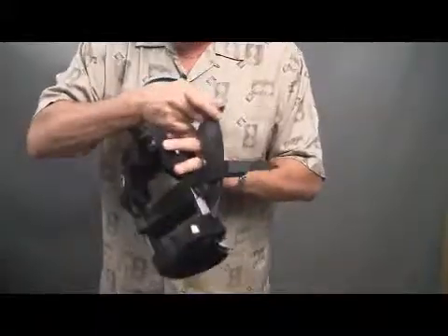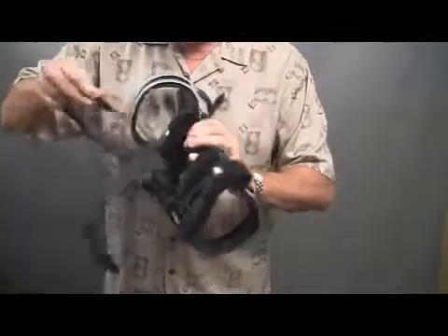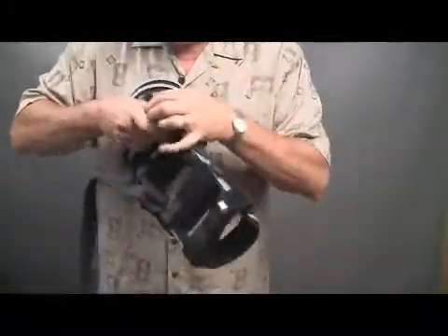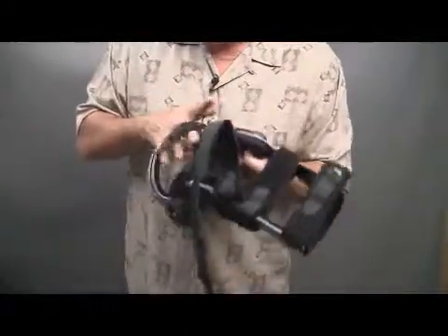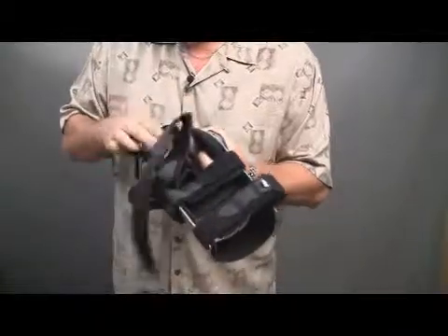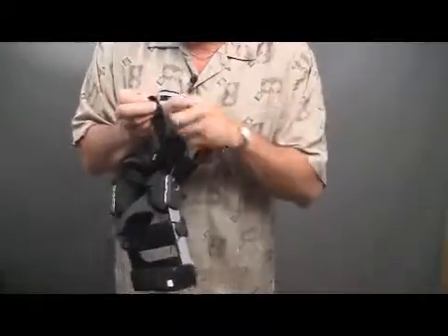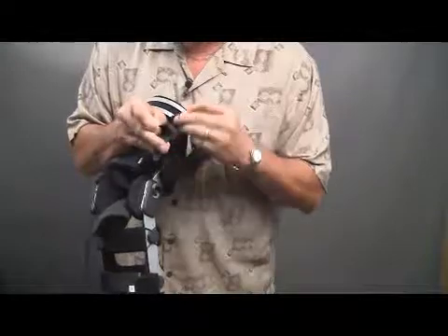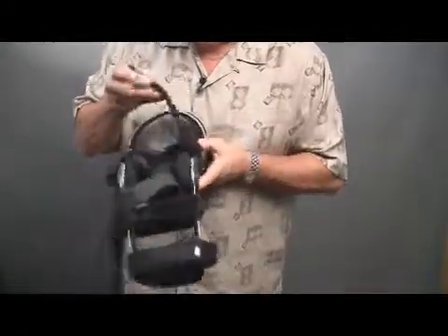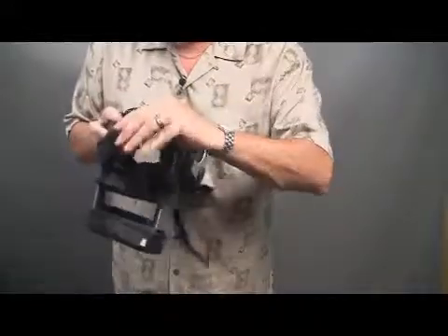When this is on one side, you take this and run it underneath the brace, underneath the strapping of the brace or the rigid bar on the side, pull it taut to where you want it, then you can take your scissors and cut this off. This is an alligator clip, so it comes off of the strap totally. Cut the brace to the desired length, reapply the alligator clip. Once it's applied to the desired length, you stick it down on the brace, and once it's done, you never have to adjust it again. It's a one-time adjustment per each brace on the patient and then it's set.